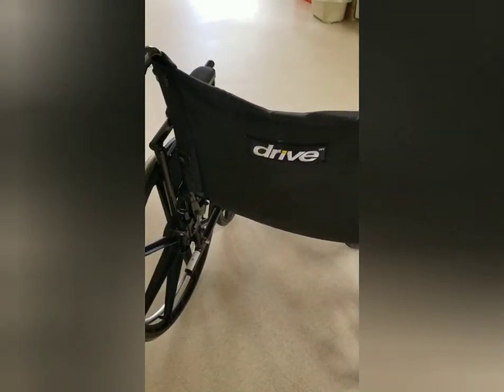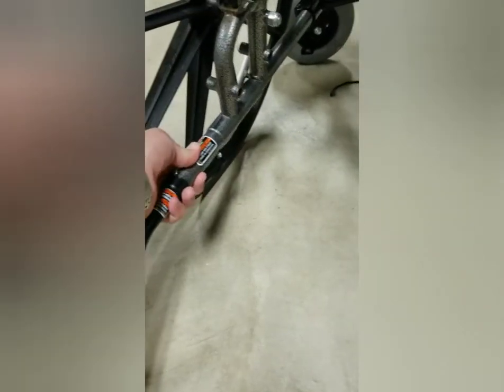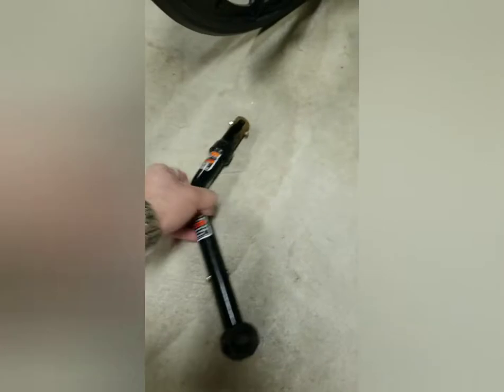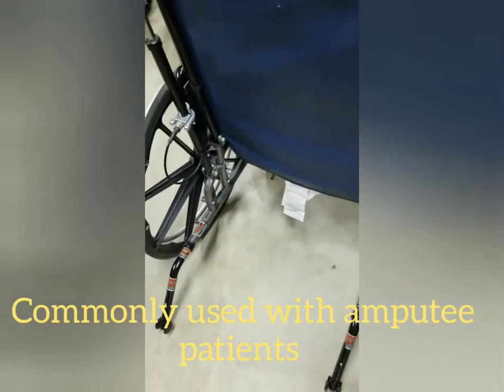There are other accessories that can be placed on the wheelchair. In the back, there's sometimes equipment that allows oxygen to hang. You might also see these small pieces in the back — these are anti-tippers, which have a push-button system allowing them to be slipped in as needed. By installing them, it prevents the chair from tilting back, which is helpful if somebody has a changed center of gravity or tends to plop into the chair and there's a risk of it tipping.